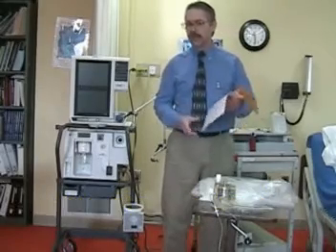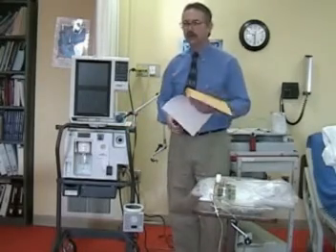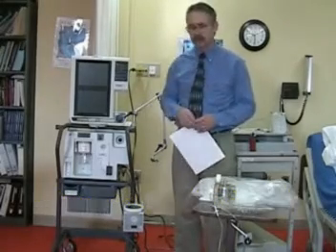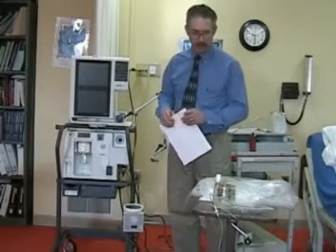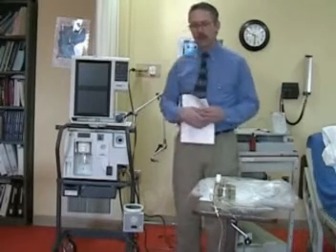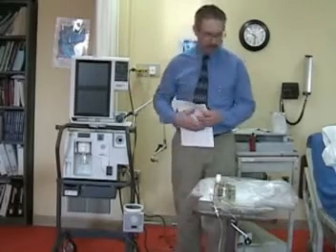The order may include all the ventilator parameters that you need, or you may have to calculate some of the parameters yourself using the patient's ideal body weight, the previous FiO2s, and your basic understanding of mechanical ventilation. In some hospitals, you, the respiratory therapist, will determine all the major parameters and alarm settings for the mechanical ventilator.